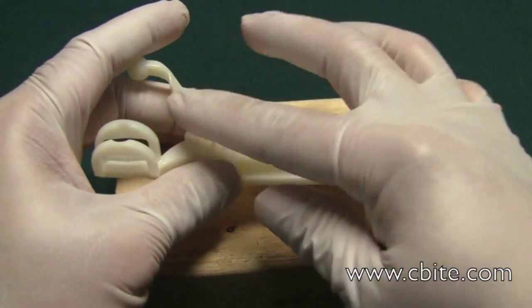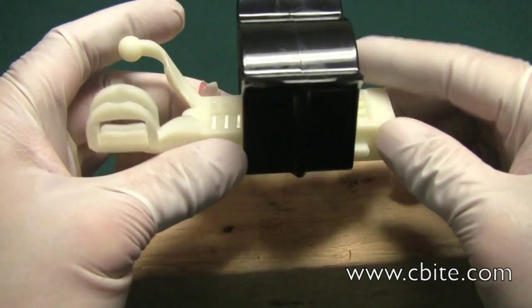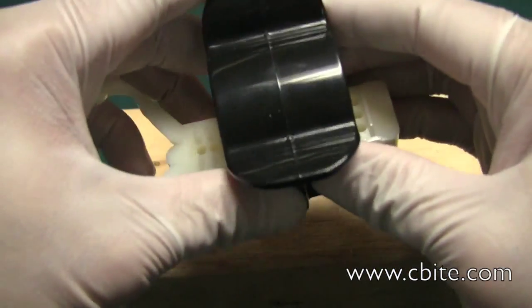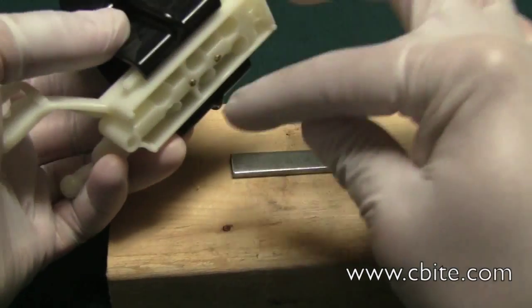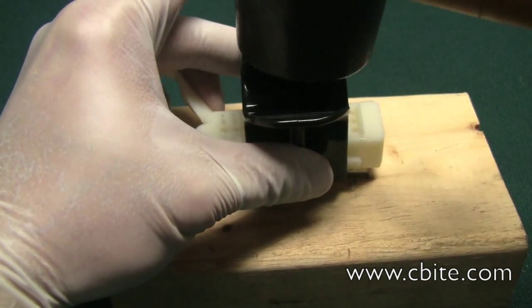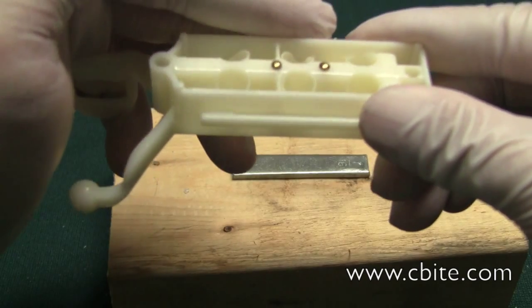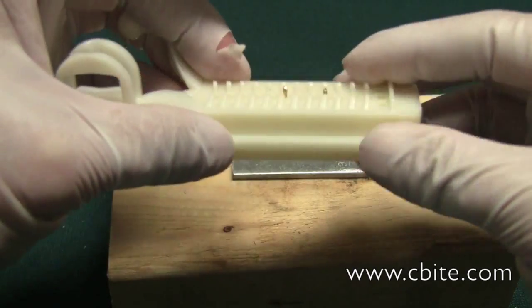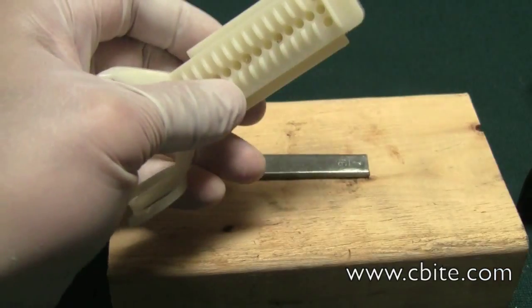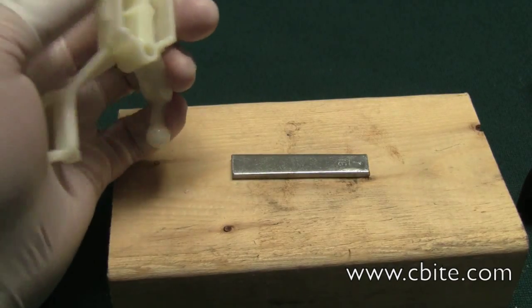Let me explain what happens here. Imagine the model is there and you put the upper tool on — the model's already been poured and the nails are not flush. If you get a piece where you can let the center part go over and then just tap it down, what you do is force the finishing nails at the bottom to go further up, and that process actually ejects the stone. It's going to be still clinging a little bit, but just wiggle a little and it comes off. Once that's done, you just push the nails back down. You can eject it right here — that's it.